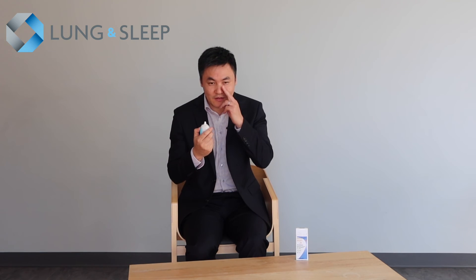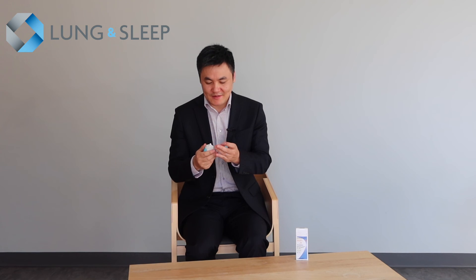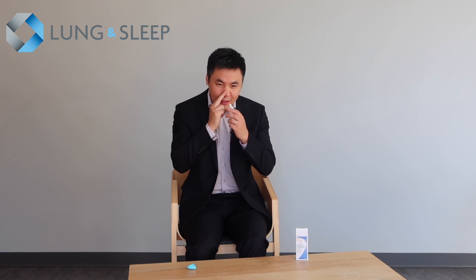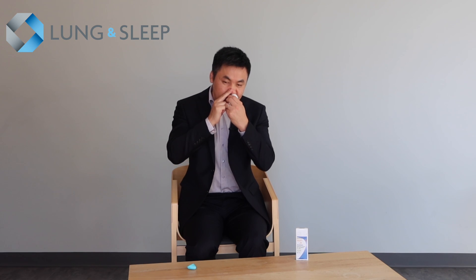I'll demonstrate that now. Block the nostril, tip in, and sniff — and that's it. Oftentimes you'll be asked to repeat the process on the other side, so the process remains the same: block the nostril, head tilt forward, and up and out. And that's that.